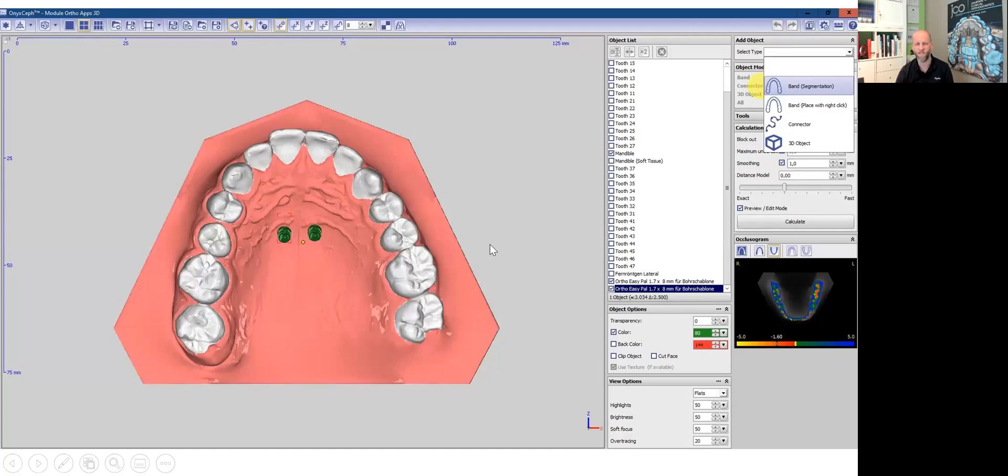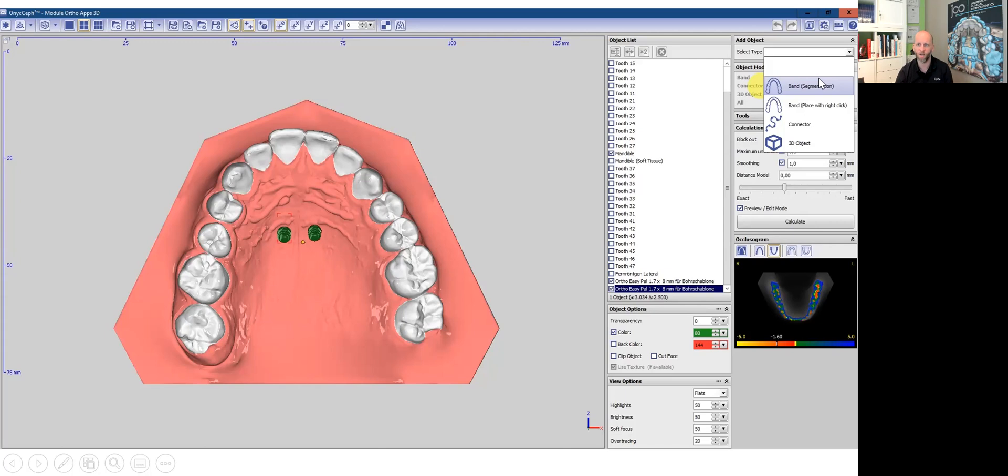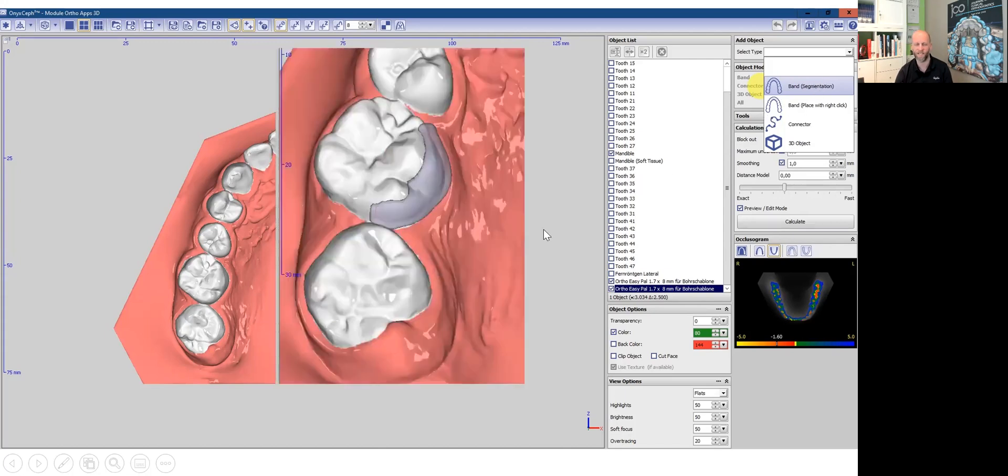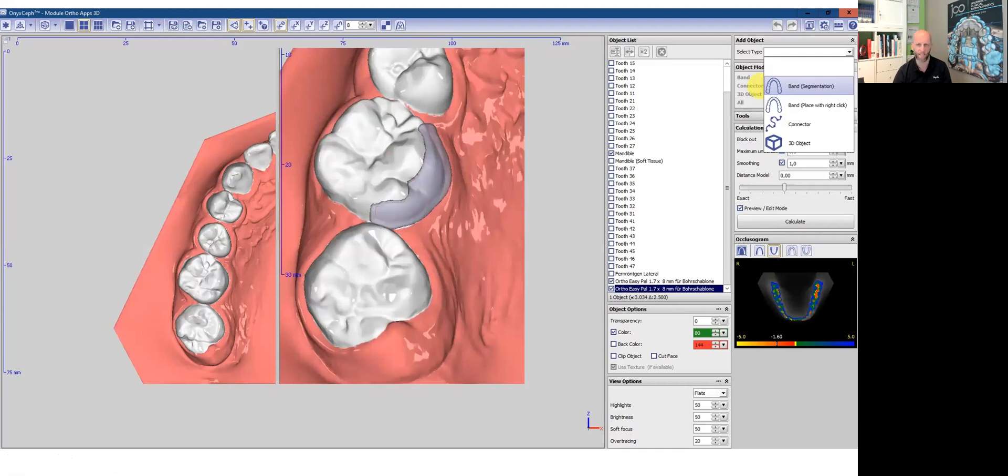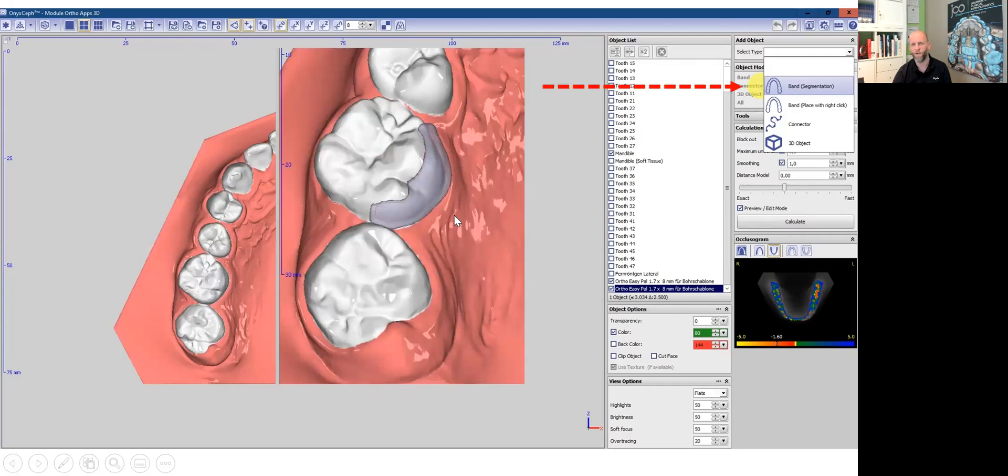I will start with using molar pads. I just show you how to work with different pieces and parts. I click on molar band and I select a half band, just a lingual pad. When you just click on the tools and on the band button, it's more or less automatically adapted. So this is part number one.